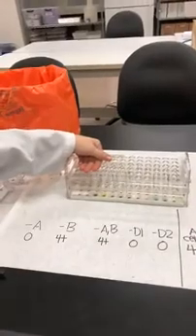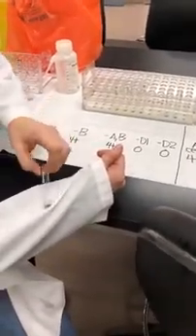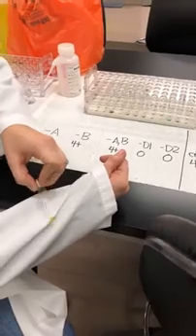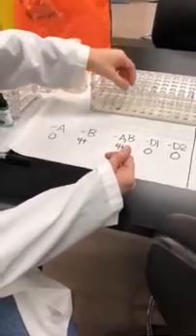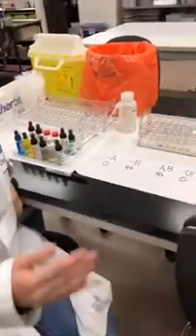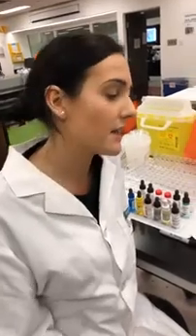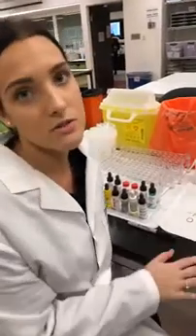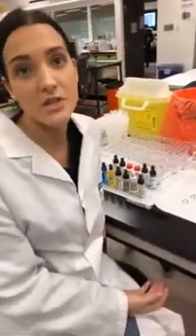We have these tubes set up to see what the blood type of the patient is. I'm going to take my A and rock it against my lab coat — here you can see it mixes quite well together. Whereas when I take the B, you can see there's actually agglutination — it didn't mix properly and there's a little bead in the bottom of the tube. Following that through for all the tubes, I could conclude this patient is BRh negative. From there I would grab the BRh negative blood from the fridge and give that to the doctor so they can transfuse the patient safely. This method only takes 20 seconds for centrifugation, which is good in emergency situations.